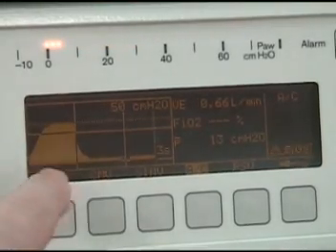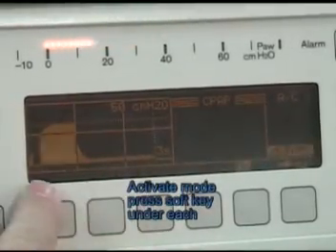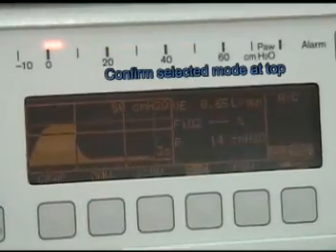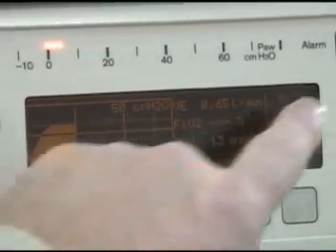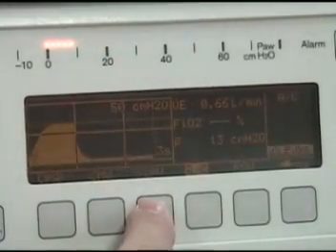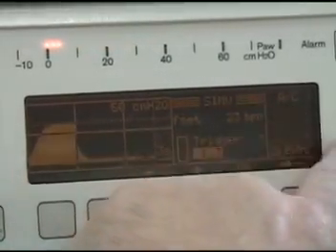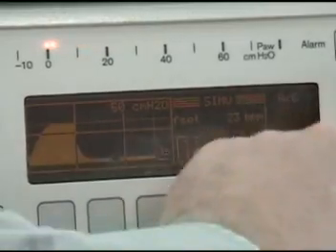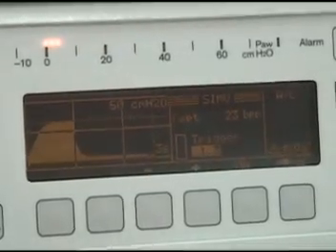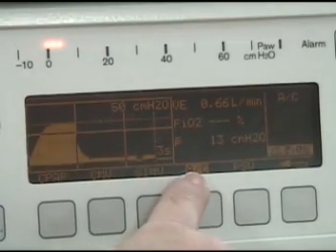Now to access any one of these to make the change, you simply press the button underneath each of those items and it will change to the mode. We have not pressed confirm, so it still is in Assist Control. So here we go pressing SIMV — it changes to SIMV, but it's still in the Assist Control mode until we press confirm. We can go back and we have not changed Assist Control.